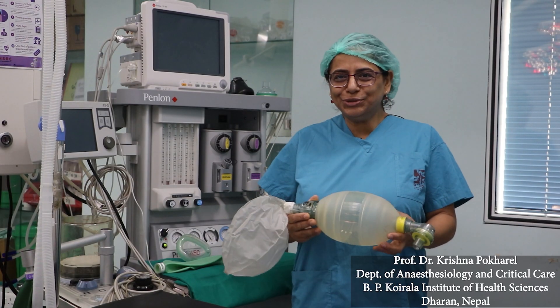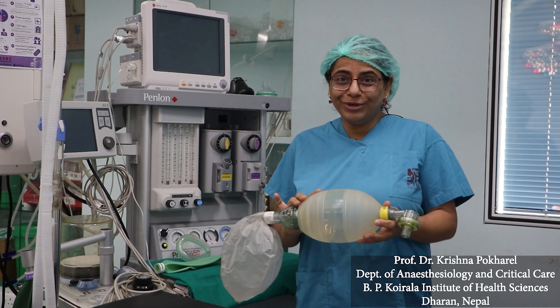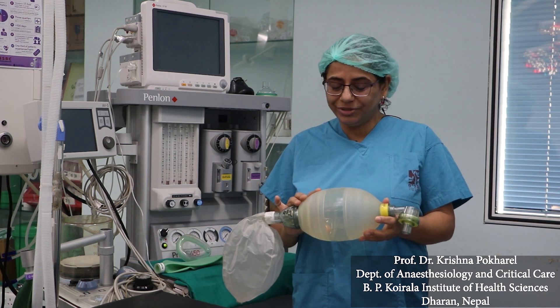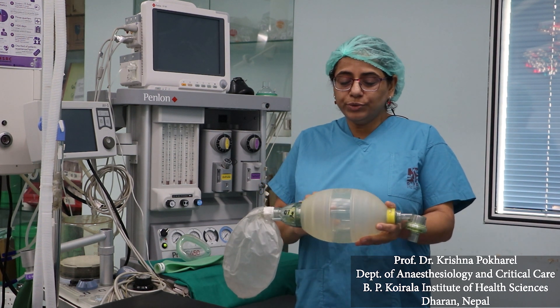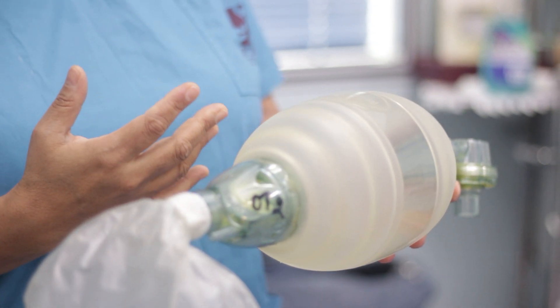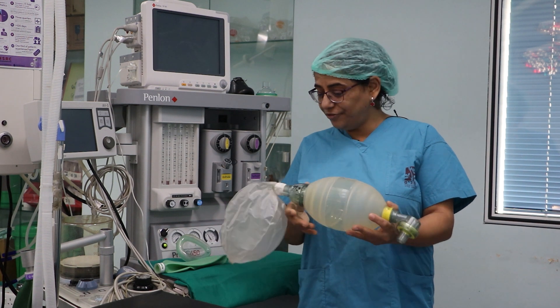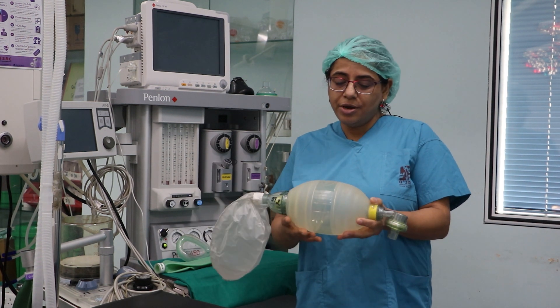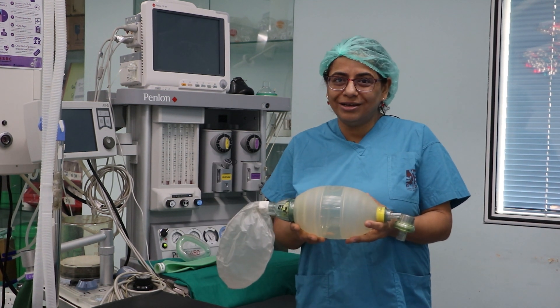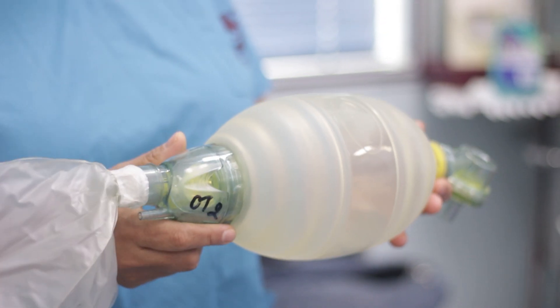In this video we will learn whether this device is fit to use in a patient or not. We should check it thoroughly before using it in a patient. First, we should inspect it for any obvious deformity, holes, defects in the structure, or any contamination by blood or sputum. I can see no such defects.